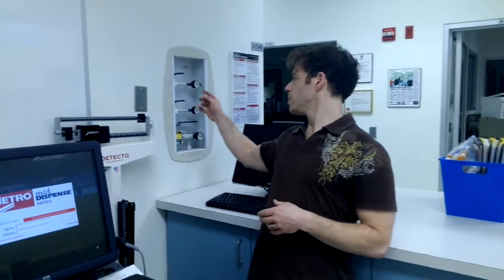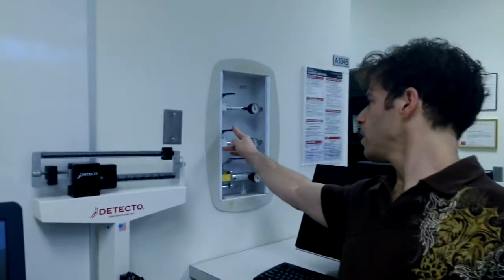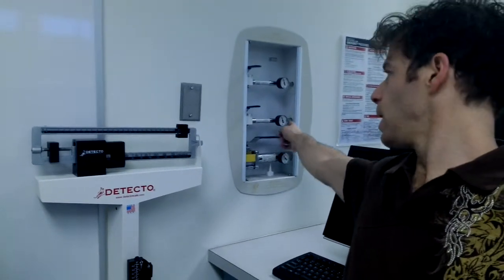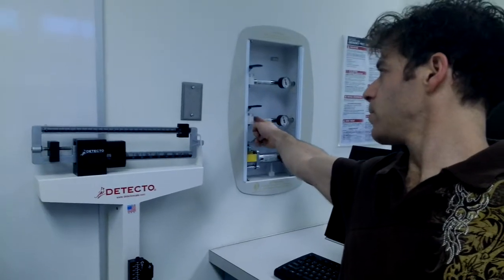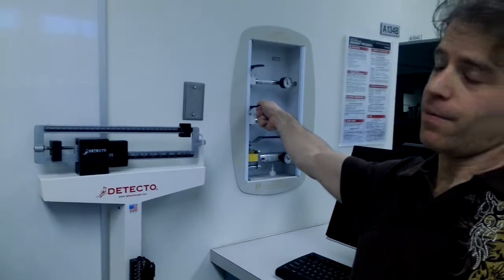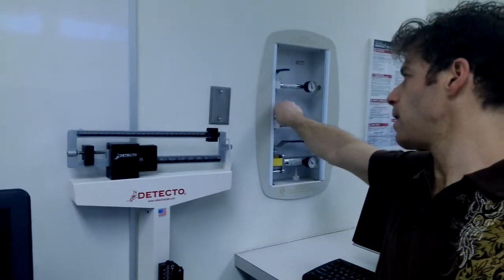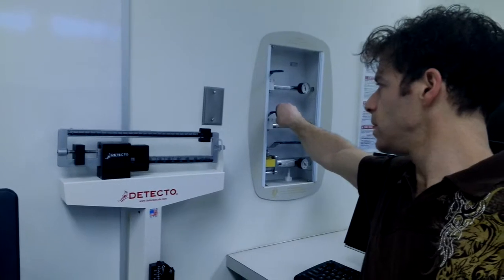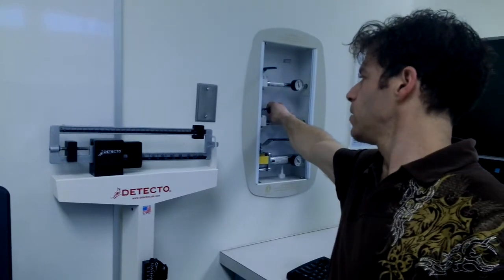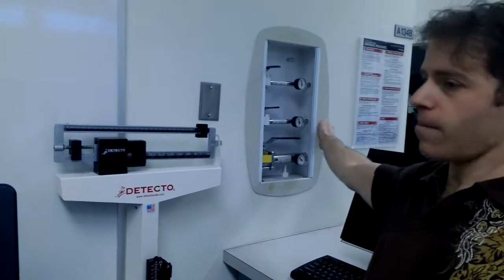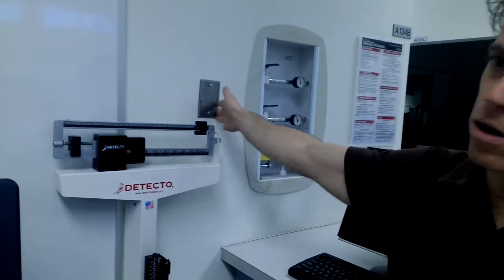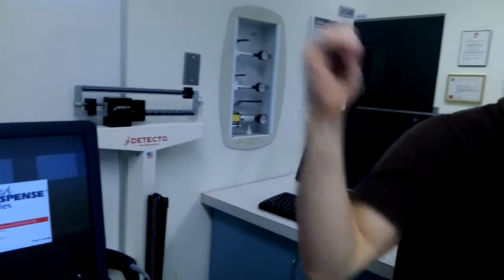The old wired guy does not have an air compressor, so when we go to turn him on, we have to supply him air. We start here at the wall. The air is coming from a compressor in the basement and through this tube. This pipe has a valve. When the valve is sticking out, that means the valve is off—it's blocking the air. So we have to slowly turn it so that the valve is in line with the pipe, which is now allowing the air to flow over to the other side of the ward.